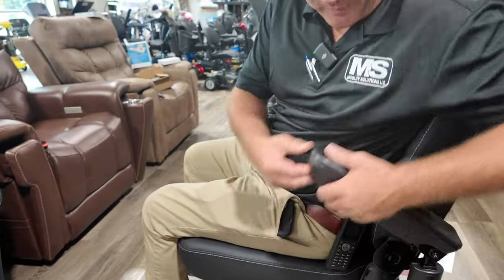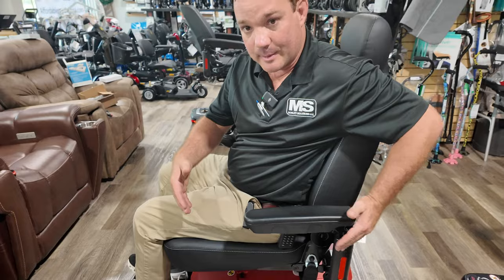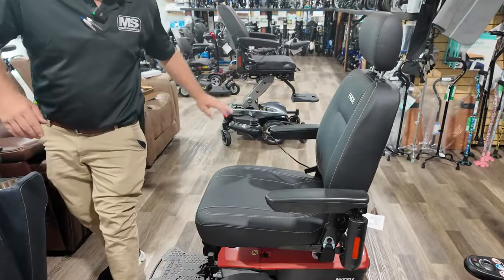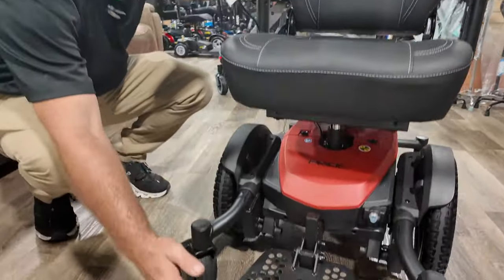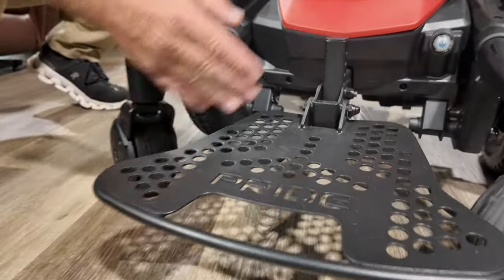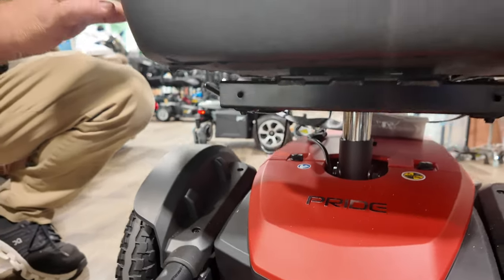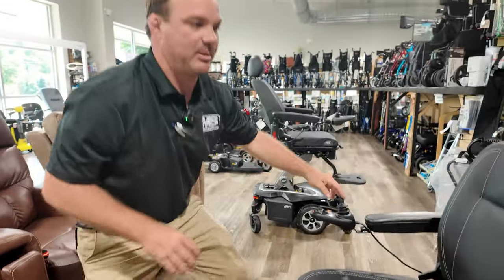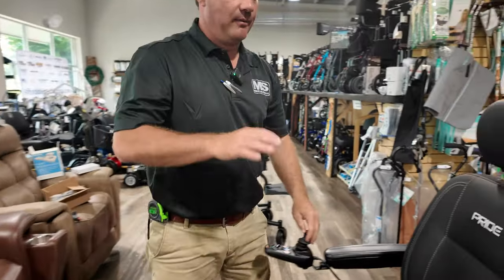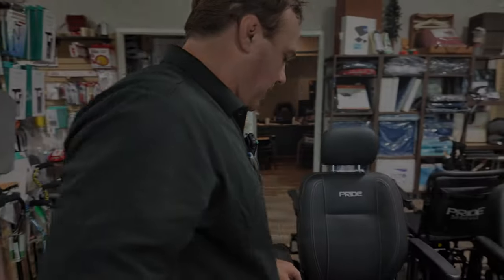It's a very comfortable chair with waterproof stitching. You can get the same seat from the Jazzy Air in this chair. The pads and arms can be adjusted for width. The seat depth can be adjusted, the foot plate can be raised and lowered, and the seat height can be adjusted — but it doesn't have a power elevated seat. It's a great full-size power chair with a high back seat, very comfortable and dependable.